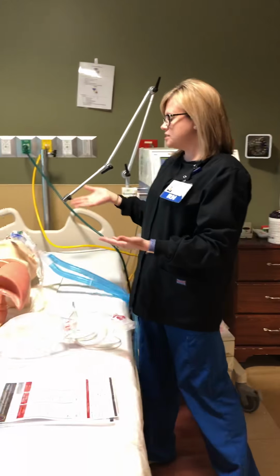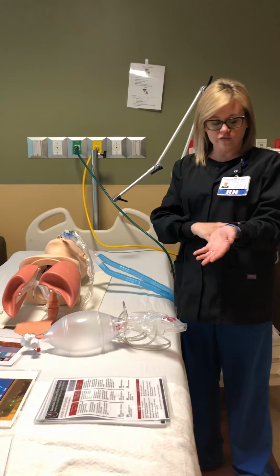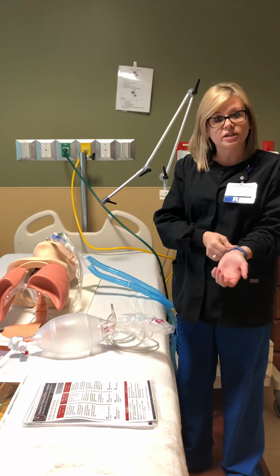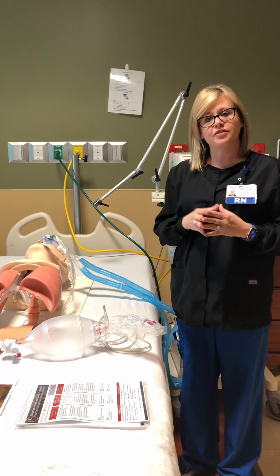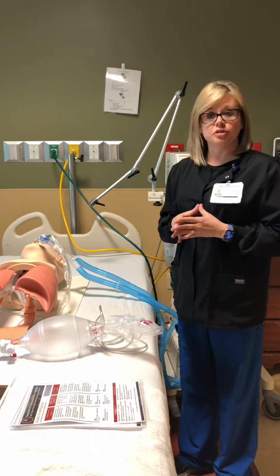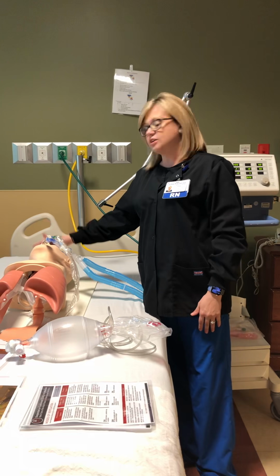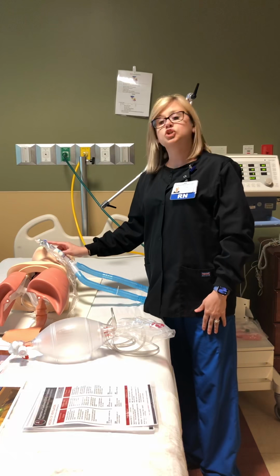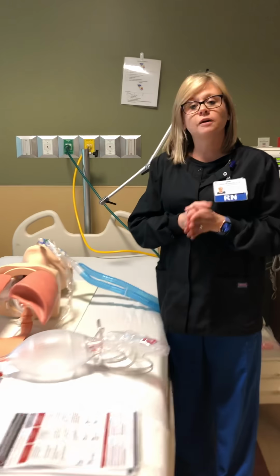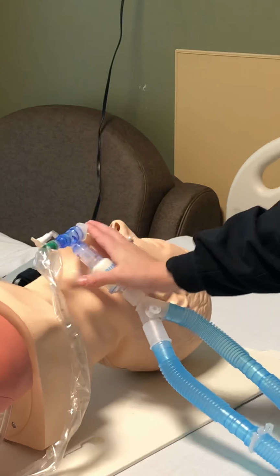The second thing to do is look at your IV. Make sure it hasn't infiltrated and you've got your sedation medications going into the subcutaneous tissue. So that's two things you can do right there if they are wide awake, biting the tube, okay? So let's say you come in and they are sound asleep, but the ventilator is alarming. And you look at their tube and you see some secretions. Well, we want you to feel comfortable to suction them. And we will go over suctioning here in just a minute.